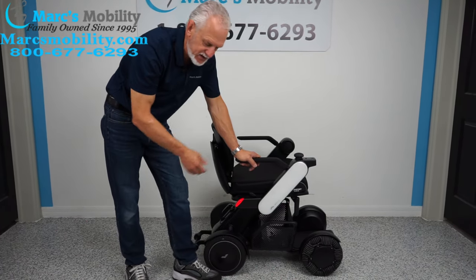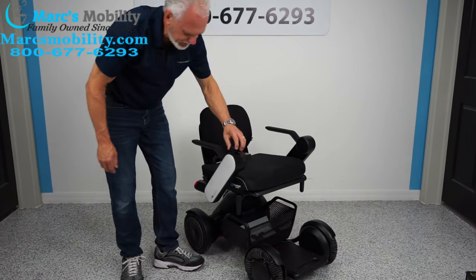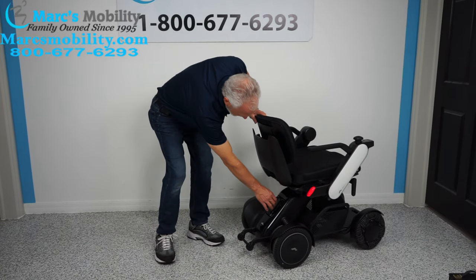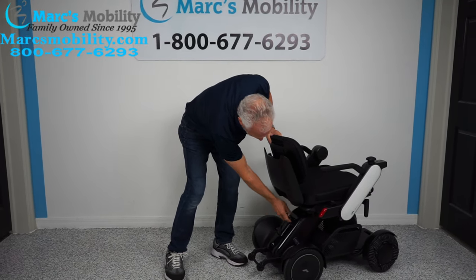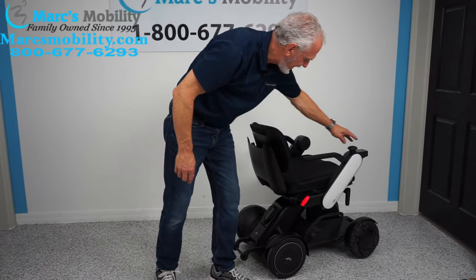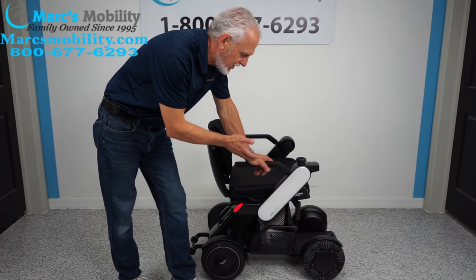With the app you can do all kinds of things with this power chair. The foot plate flips up. There's a large basket in the back for storage. The freewheel levers are here — one for each wheel. Your battery pack charges from the back; you can remove it or charge through the port and replace the cover when done. You have anti-tip wheels and a 300-pound weight capacity, with lights on the back end. Total range is up to 11 miles and this chair is airline approved.